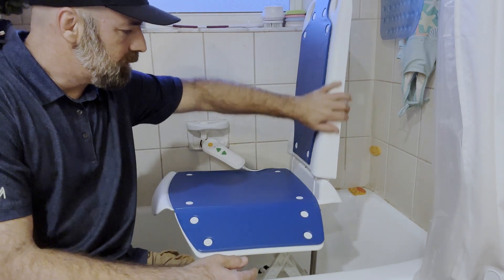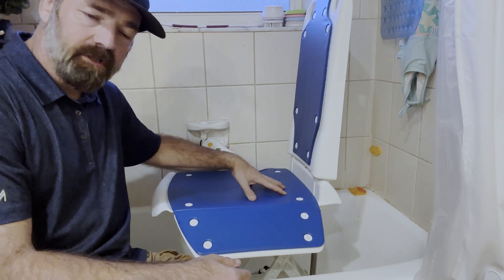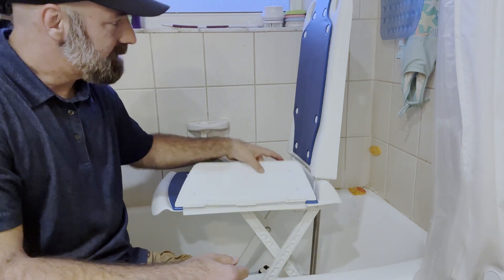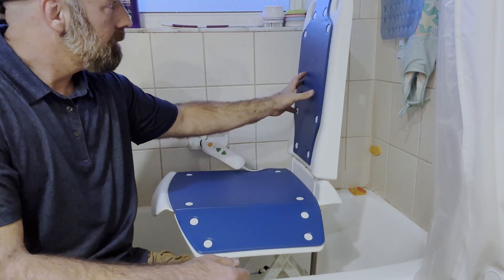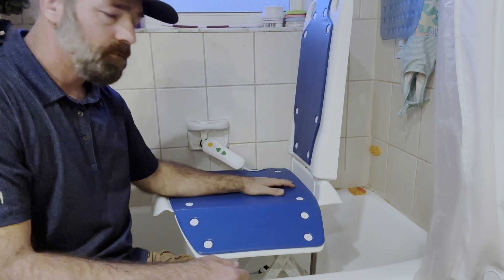This is a completely waterproof lift chair. It has vinyl cushions on it with a memory foam type padding inside the vinyl. It's all made out of plastic, but it does have a steel rod actuator in the back for maximum support. And this thing can lift up to 300 pounds, which is quite a bit.